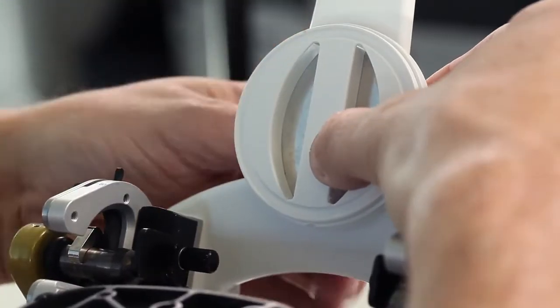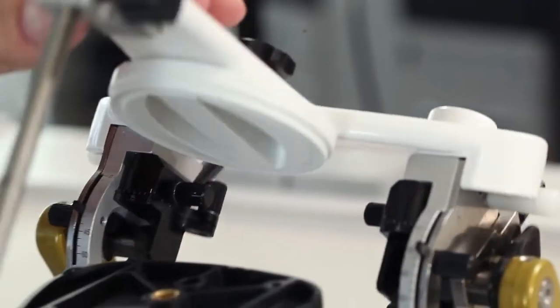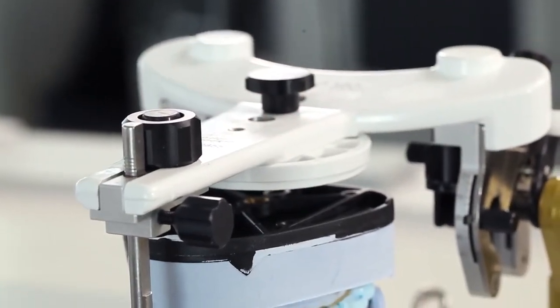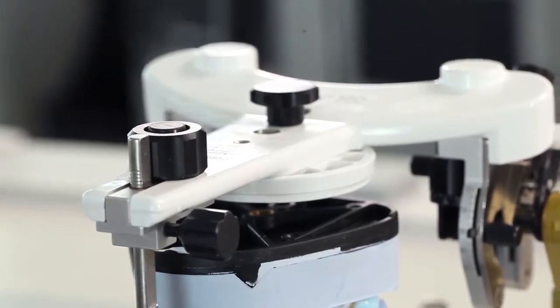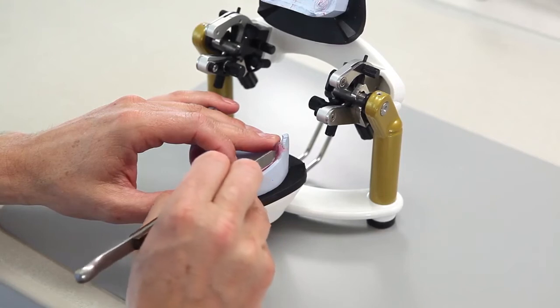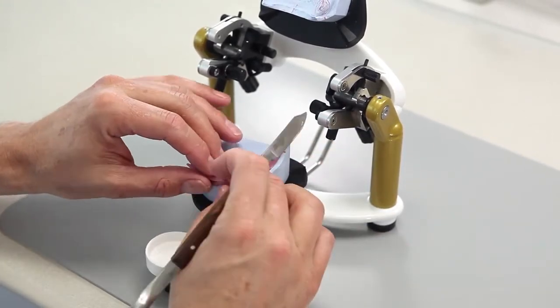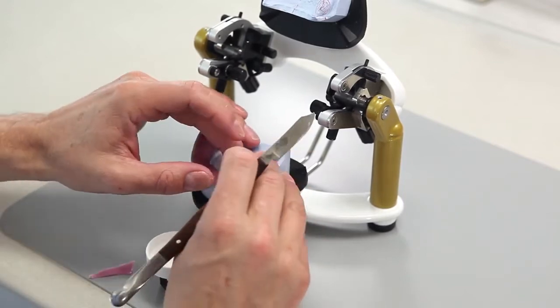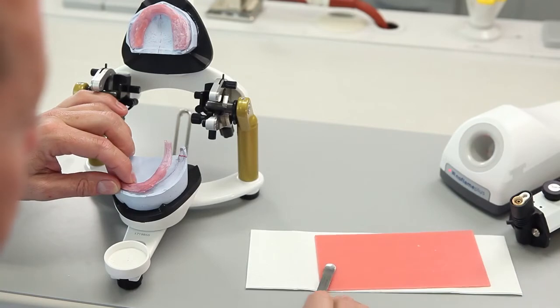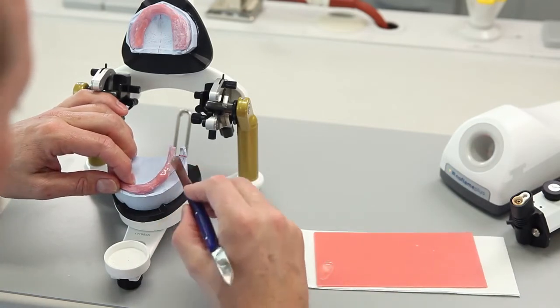Mount the maxillary model in this position using the magnetic base block. Articulation is done in the conventional manner with or without a split cast system. Precise and stable resin plates made of tray material facilitate the try-in and prevent deformation. Ideally, use a hard wax with a high softening point for setting up the teeth.